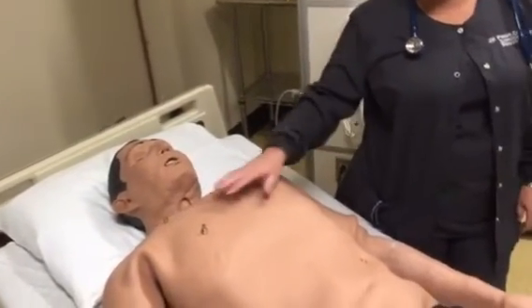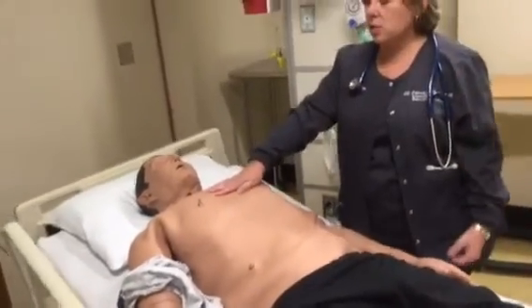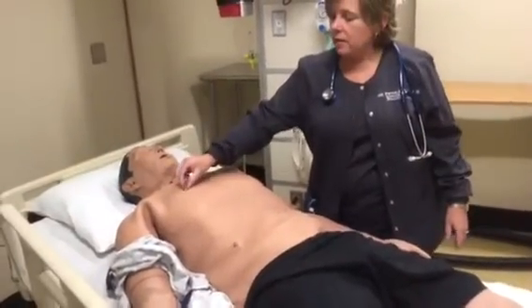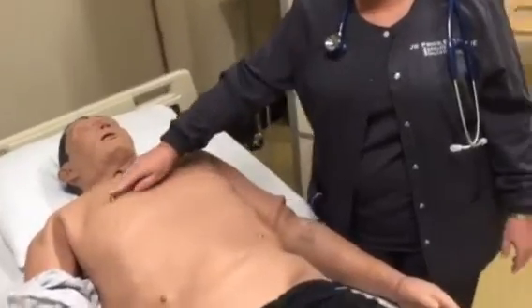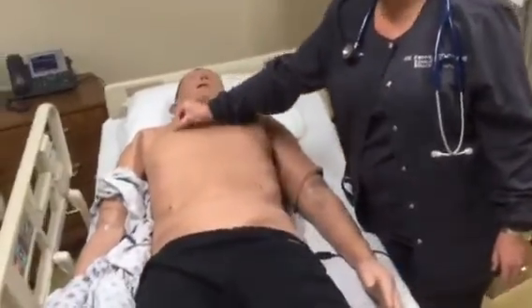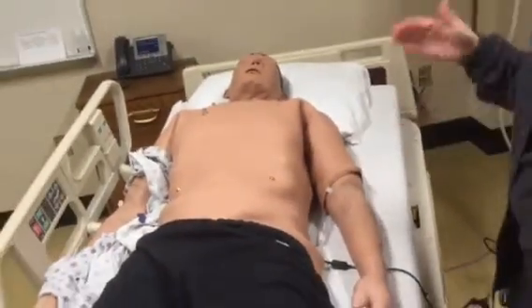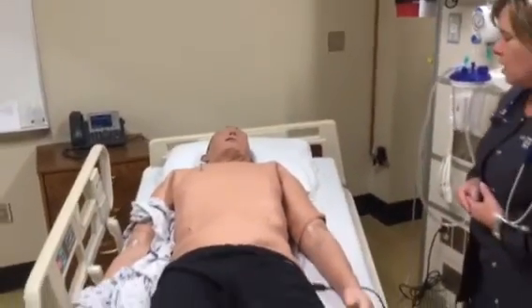So if you've watched the medication room orientation with the crash cart, I mentioned a hands-free defibrillator kit, and these little accessories that we've put on him are where those clips slide onto. So you'll snap those onto here, and it will act as though you have your 2 pads on, and you can proceed with either your pacing or your defibrillating.